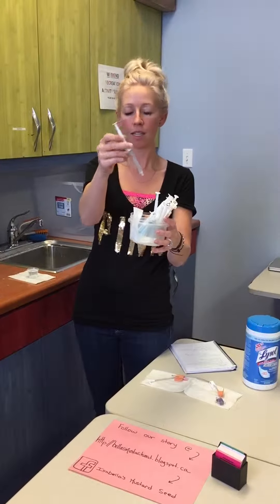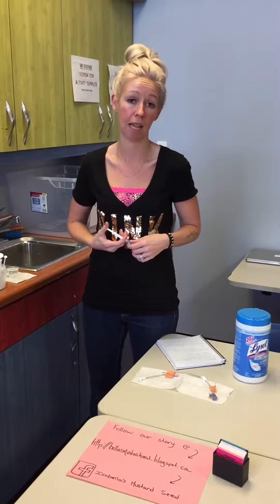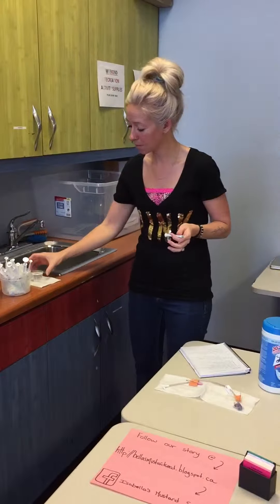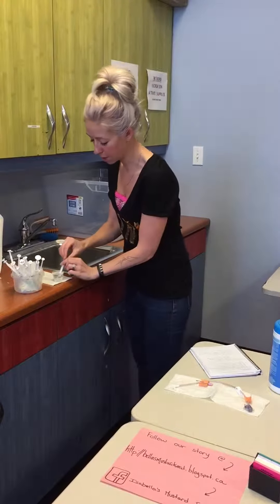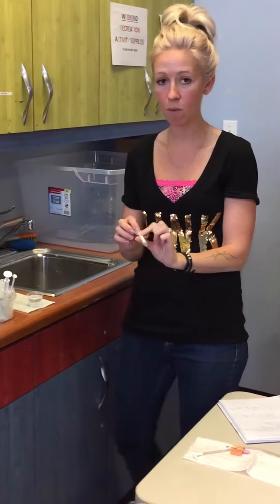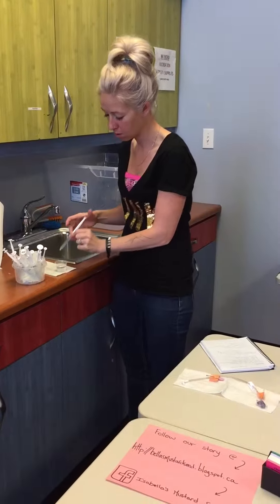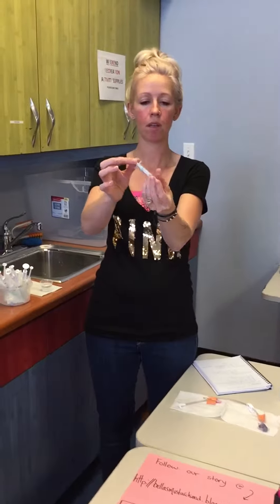This is what I do and it's quite simple, and they last for as long as I'd like them to last — at least a month or so. After you give your child their med, get some warm water and just draw up gently and squirt out. This even works well with really sticky meds — just draw slow, then squirt out.